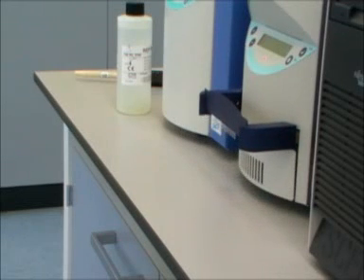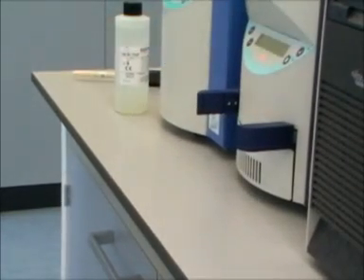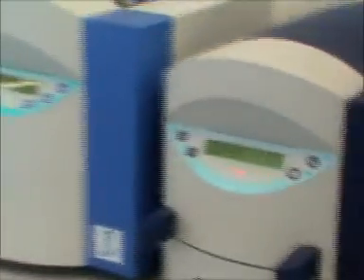The drawer then closes and the electrophoretic step starts. 60 volts for 22 minutes with the acid gel and 200 volts for 30 minutes with the alkaline gel. The sample comb is then discarded.